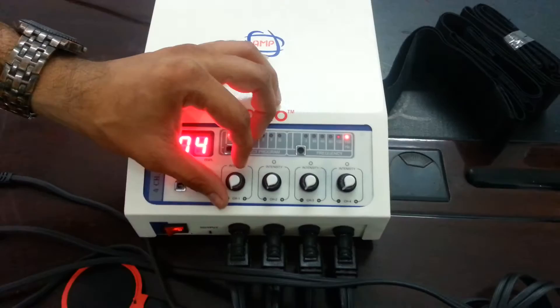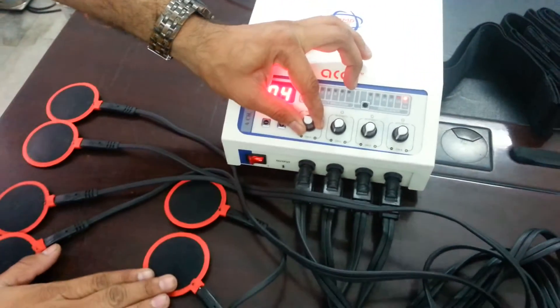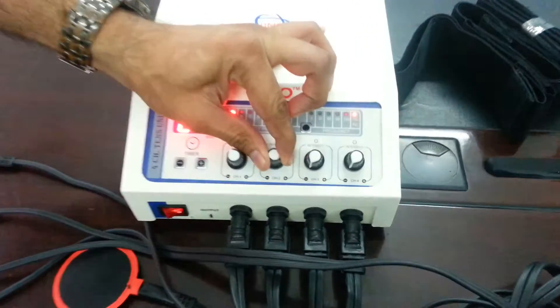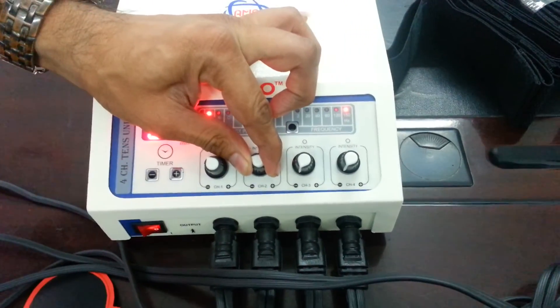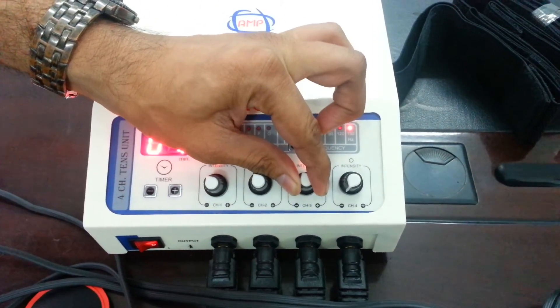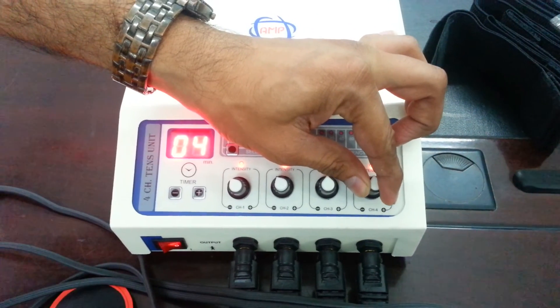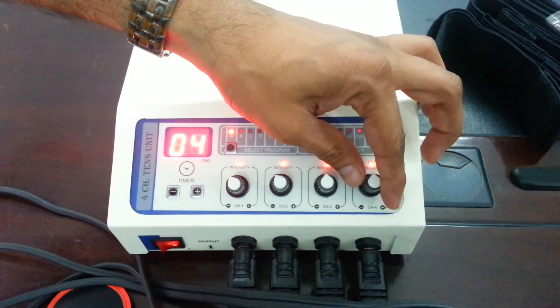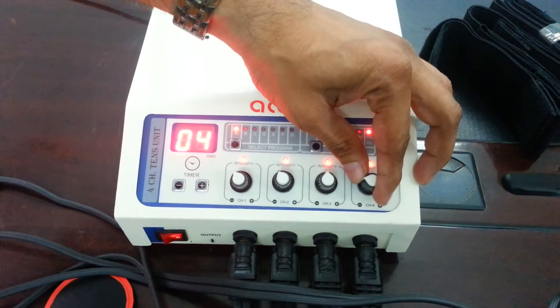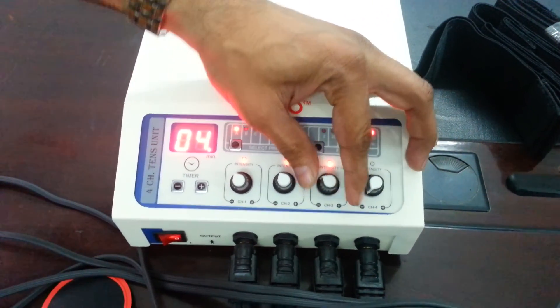Increasing intensity Channel 1. Increasing intensity Channel 2. Increasing intensity Channel 3. Increasing intensity Channel 4. Intensity down.